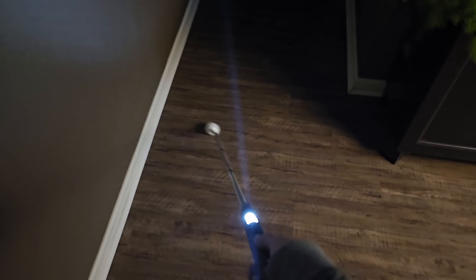We also have an improved obstacle detection sensor, which is going to give much more reliable results. It also has an audio warning system — very similar to the alert you get from a car when it's backing up and gets too close to something. And there's a new flashlight on the cane that will help in low light situations. While there can be a little glare at night, more importantly it makes you much more visible to people and traffic around you.